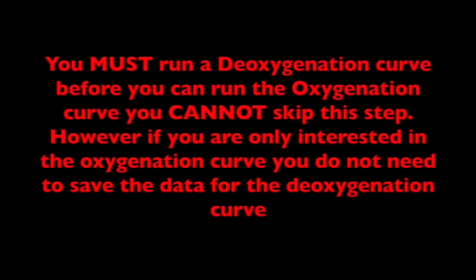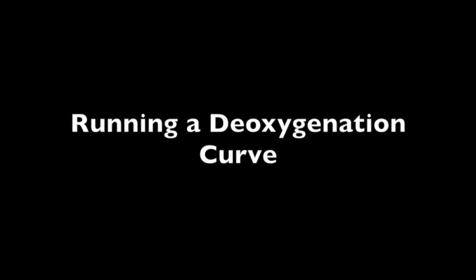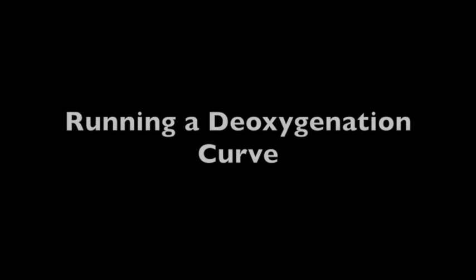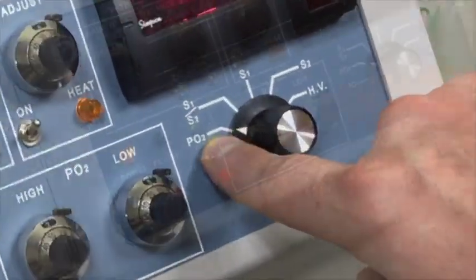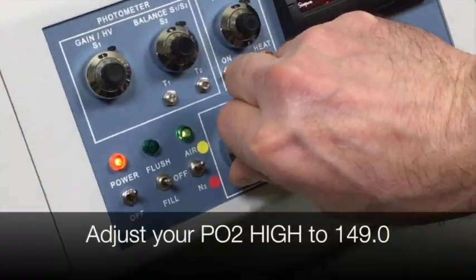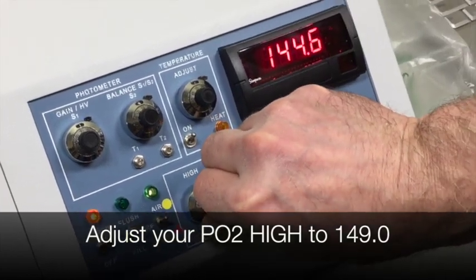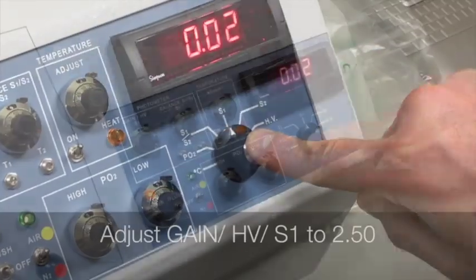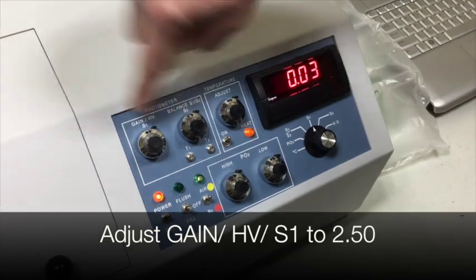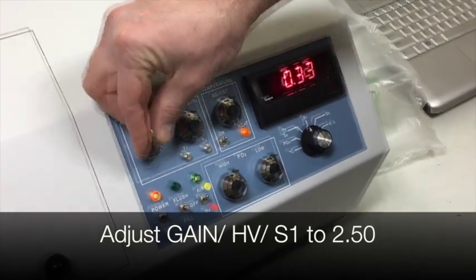You must run a deoxygenation curve before you can run the oxygenation curve. Running a deoxygenation curve: with the sample in the cuvette, turn your selector knob to PO2. Adjust your PO2 high to 149.0. Turn the selector knob to S1. Adjust gain HV S1 to 2.50.